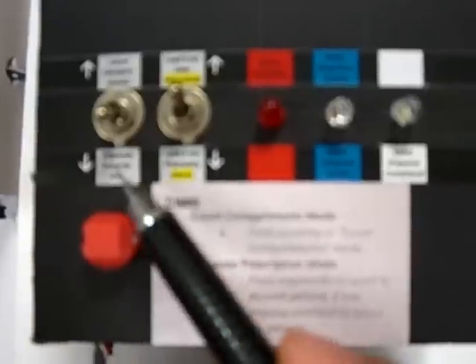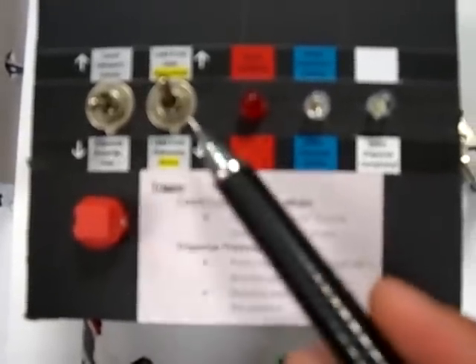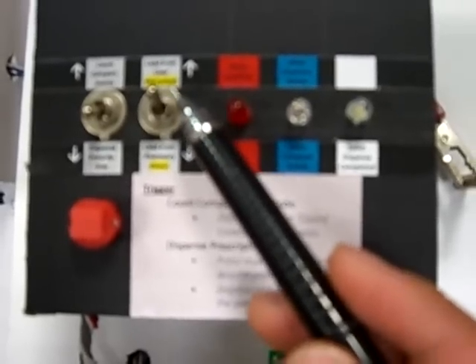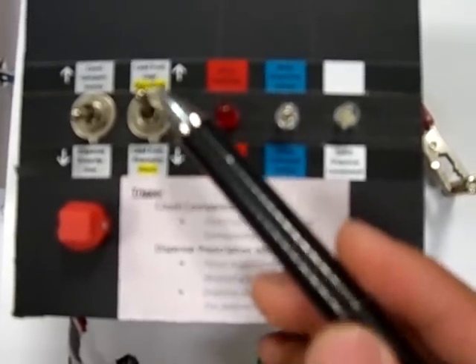Functions of the control panel — the control box. This SPDT switch is to switch between manual counting of compartments and auto dispensing. The other SPDT switch is to switch between loading from this end and loading from the other end.